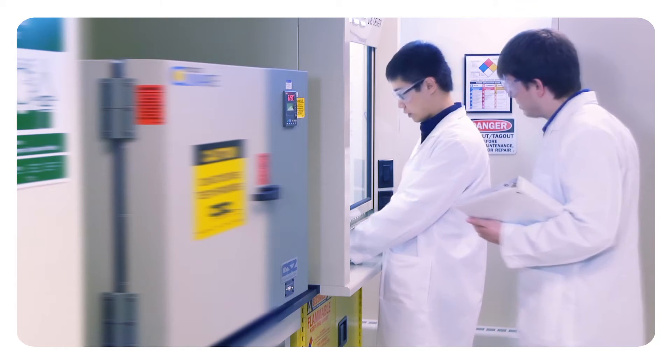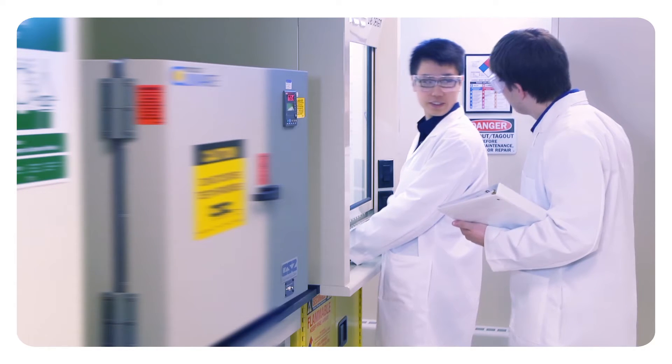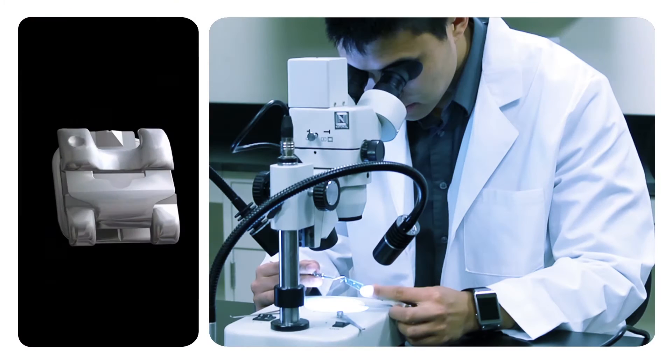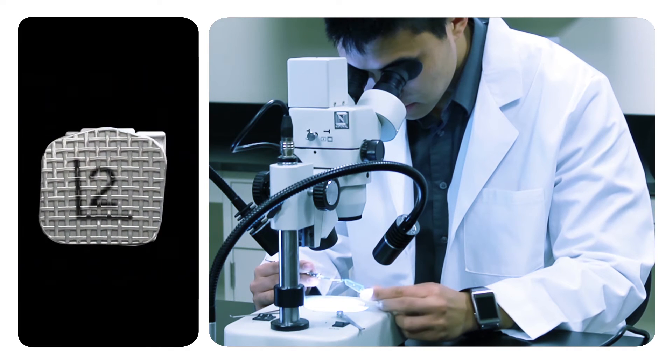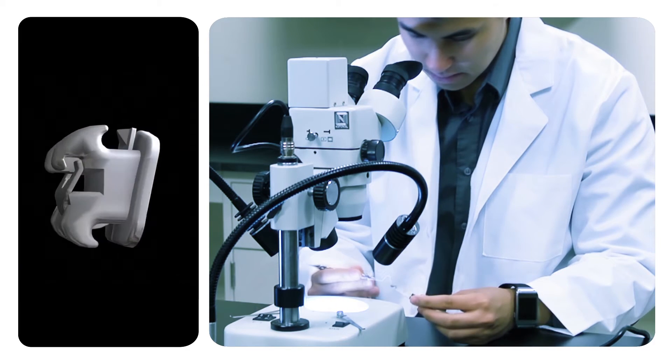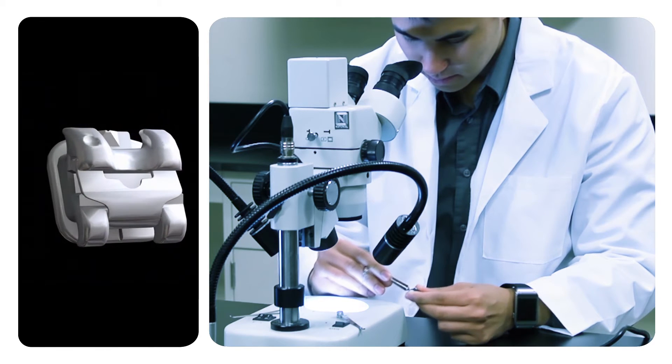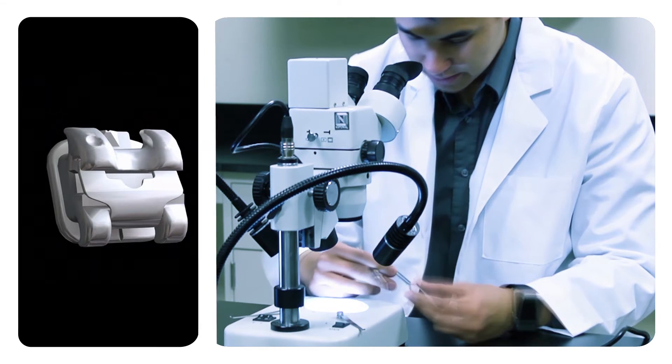Designing and engineering the products that define orthodontics. By establishing centers of excellence in Europe, Japan, and the US, we can perform innovative mechanical and in vitro testing, FEA, CAD, and the latest in statistical analysis.